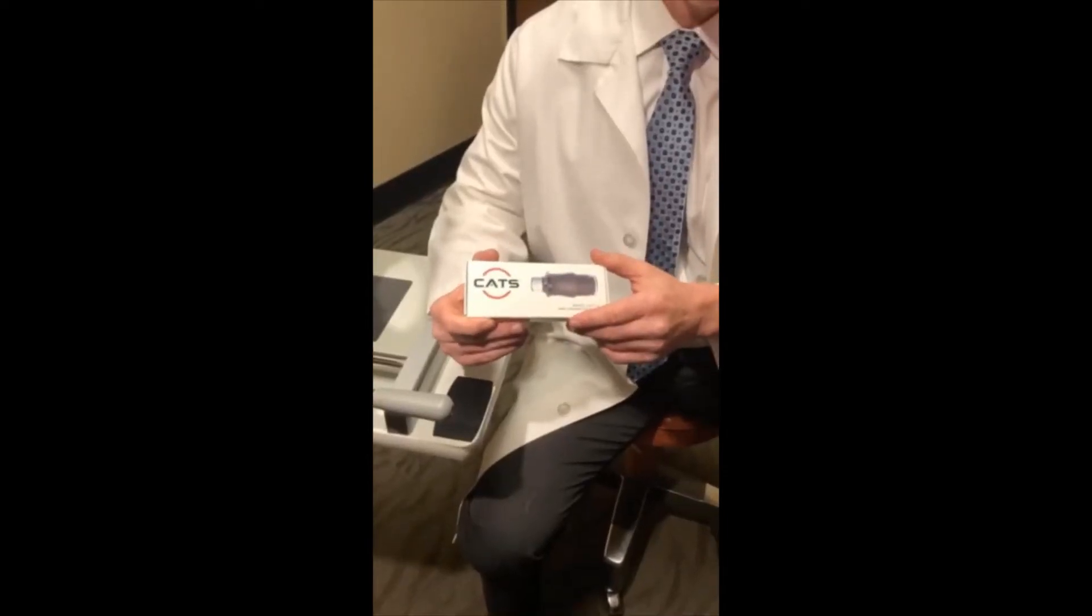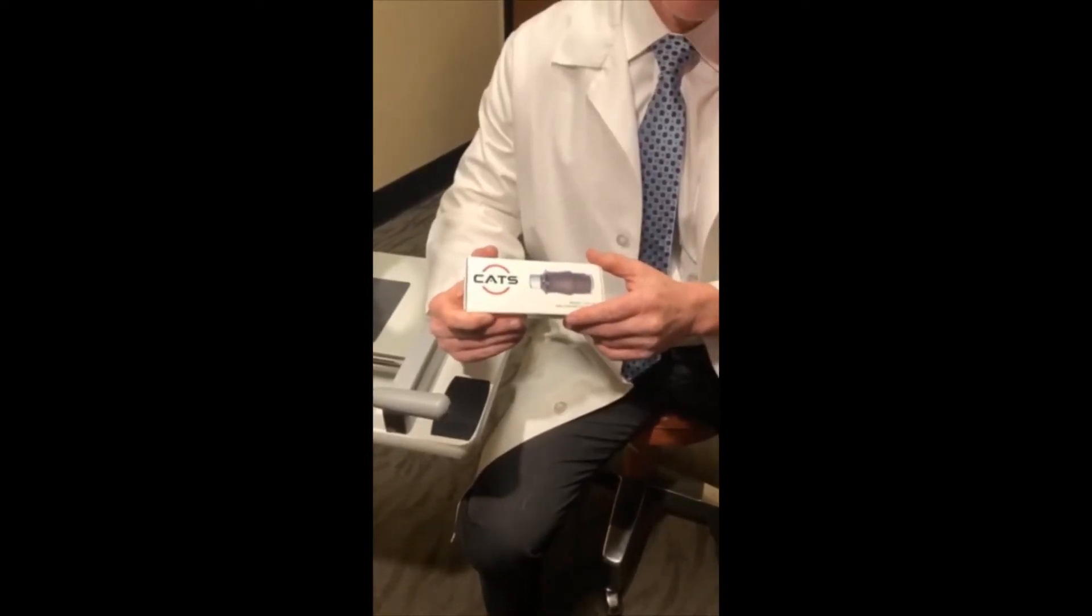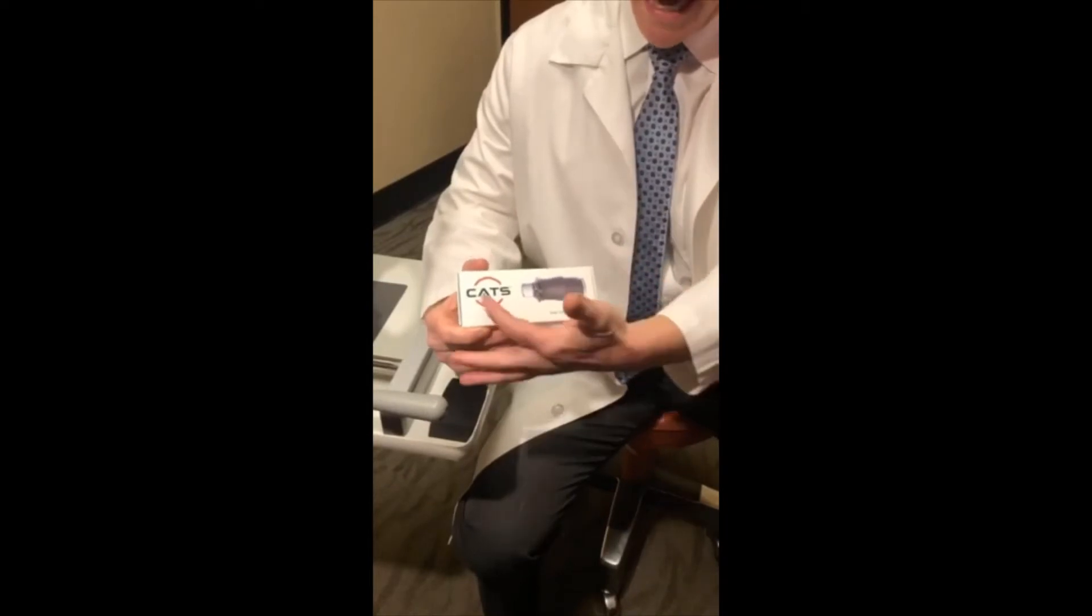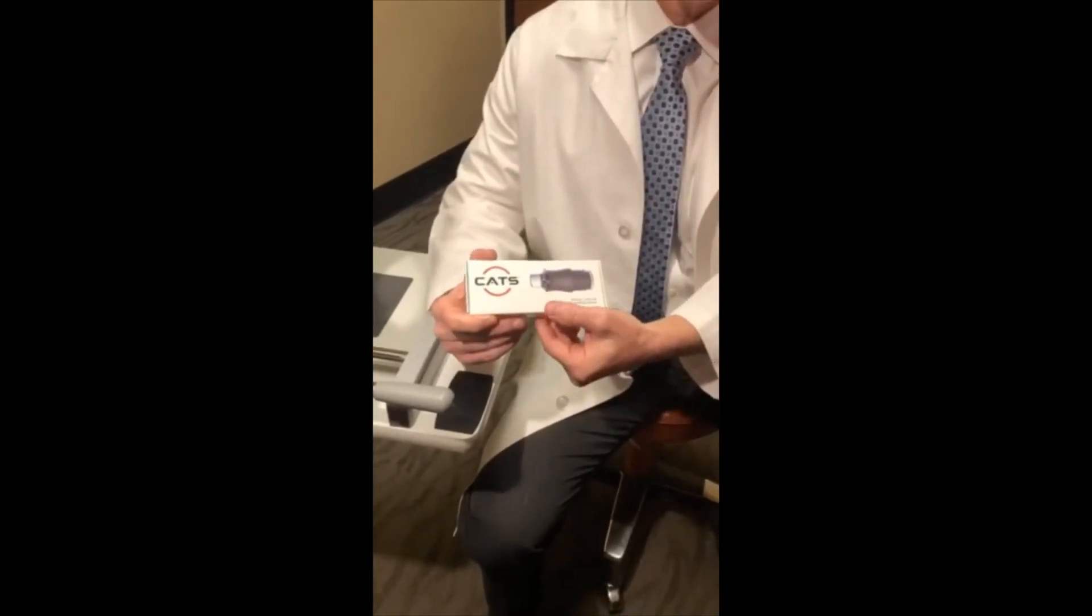When you receive your CATS tonometer prism, you will notice some distinct differences compared to the standard Goldmann. CATS stands for Correcting Applanation Tonometry Surface.